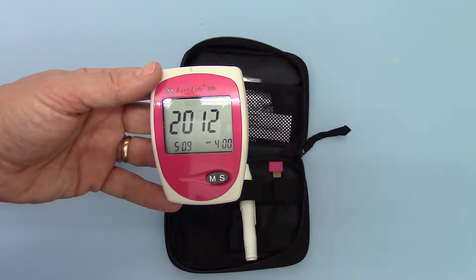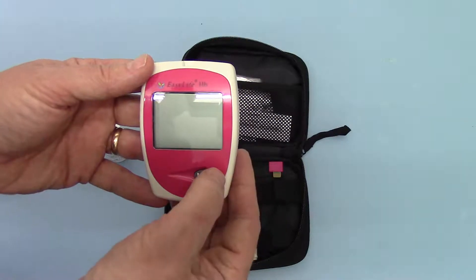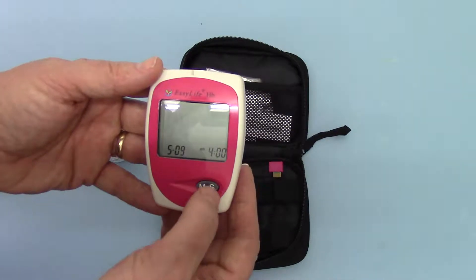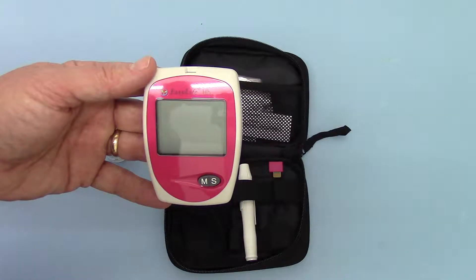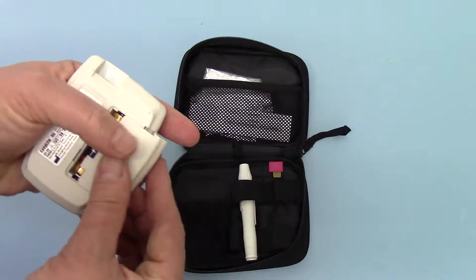You'll see the default setting is 2012, the year. It's timed out. First thing to learn with these is, when you first put the batteries in, you have got — I think it's 15 seconds — before the meter defaults to what's been set.